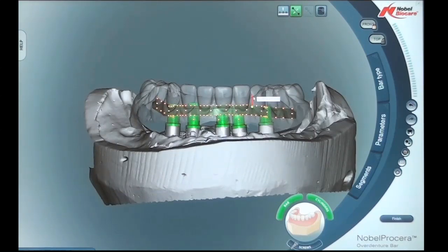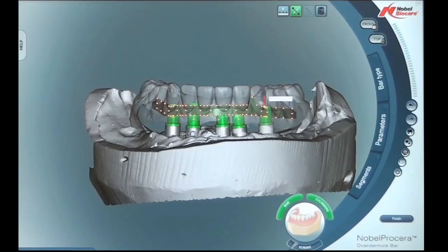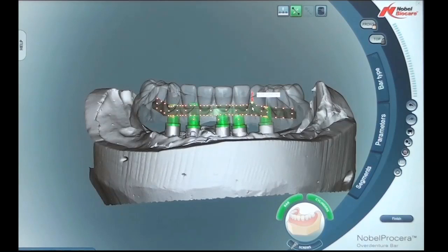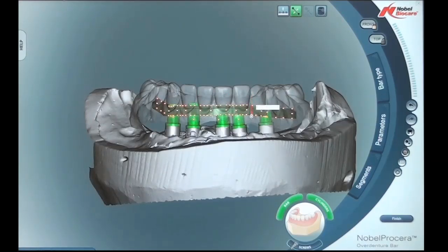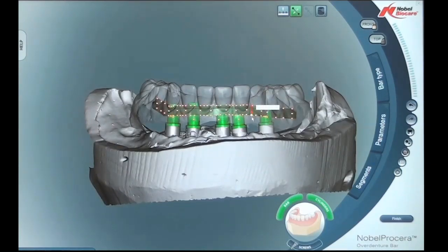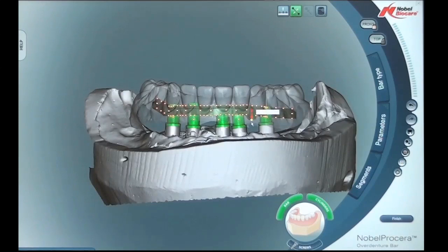From the front view segment, we're able to click on a white dot and raise the bar from the top segment to any desired height we need. Depending on tooth position, you're able to manipulate the bar to suit the best situation for bar strength, for hygiene issues, and also for space for acrylic and for denture teeth.